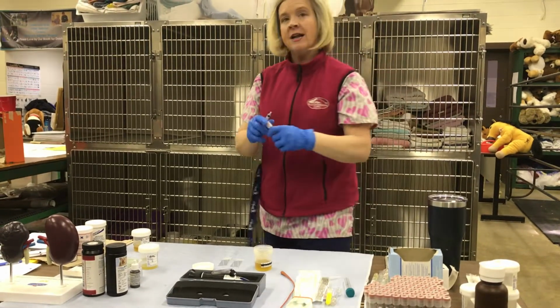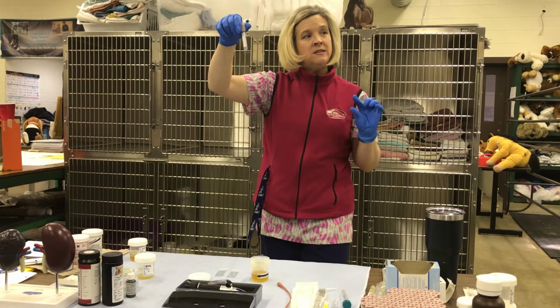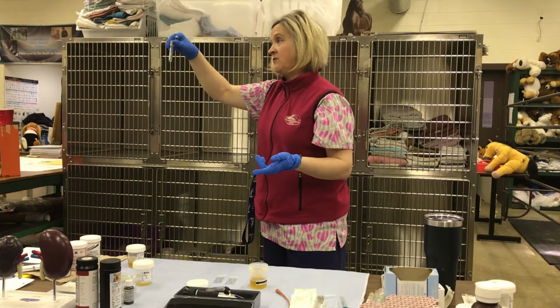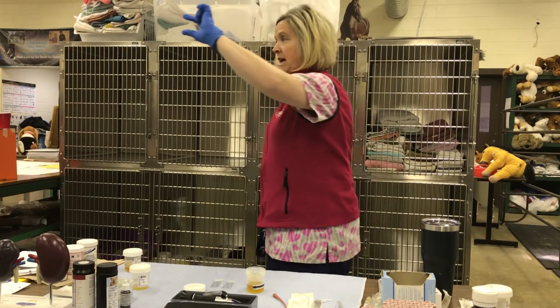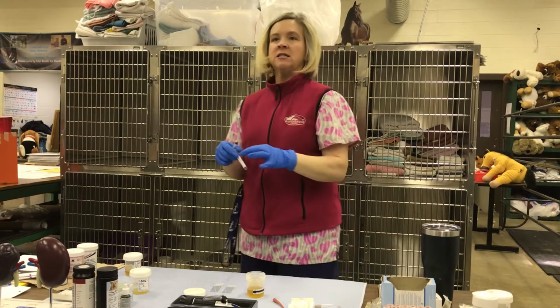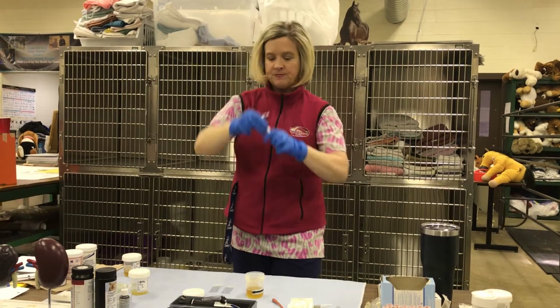For urine collection, depending upon your practice, typically all we need is 1 cc of sample. So you can go up to 1 ml to 3 cc's of urine, okay? Some practices have little tiny microtainer tubes that we can spin in a little stat spin centrifuge. We don't have one of those, so we're going to have to use these, okay?